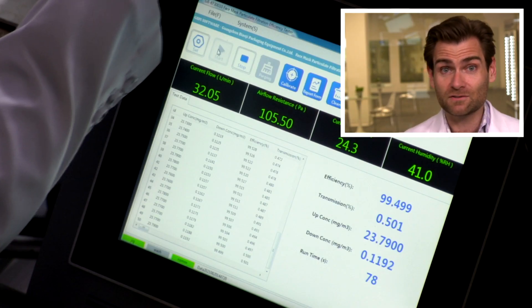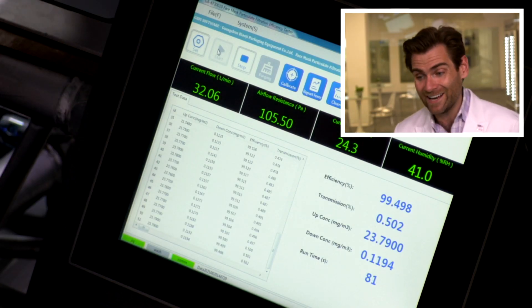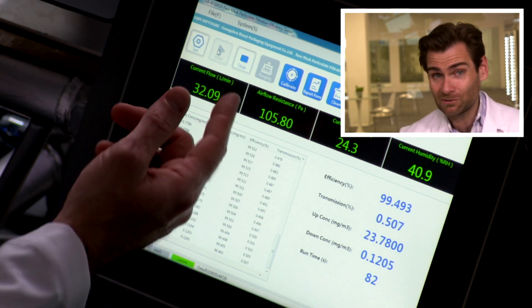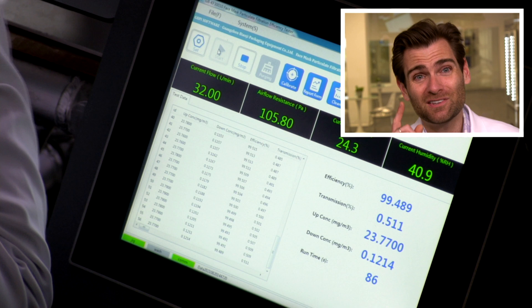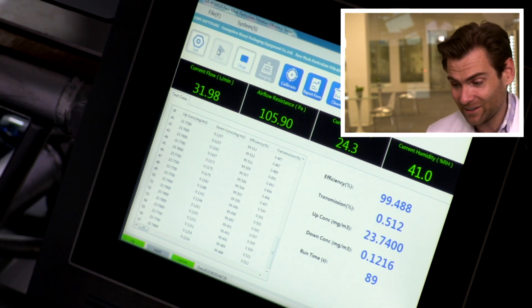I'm actually pretty impressed. Let's just do this live — look at that. 99.49%, great breathability. Home Depot, you made a good mask that stood the test of time. That's always very interesting.